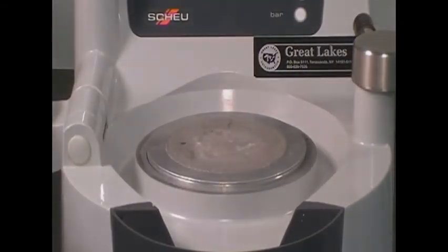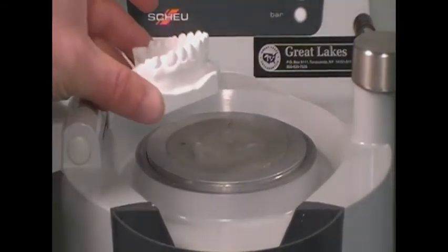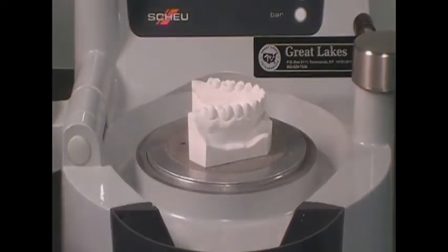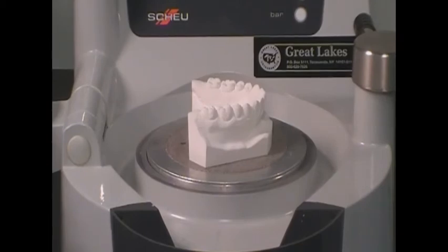The model with a flat trim base is placed on the center of the platform. In this application, the heel or back end of the model should be referenced towards the open chamber. The shorter the model height, the less material stretch or thinning will occur during the forming process.